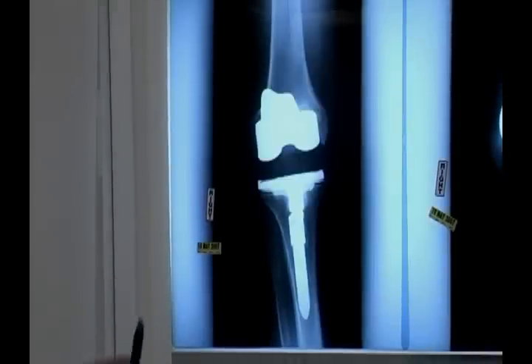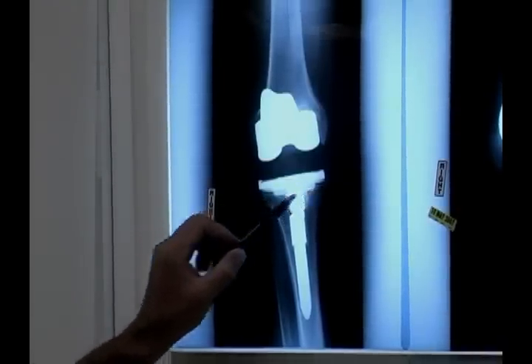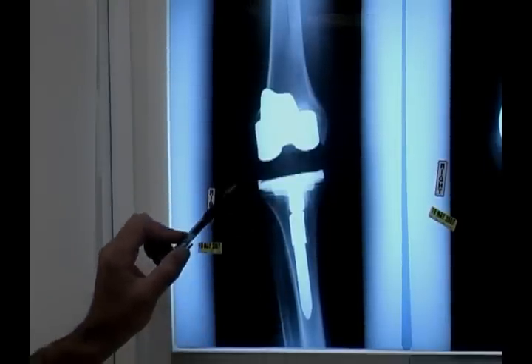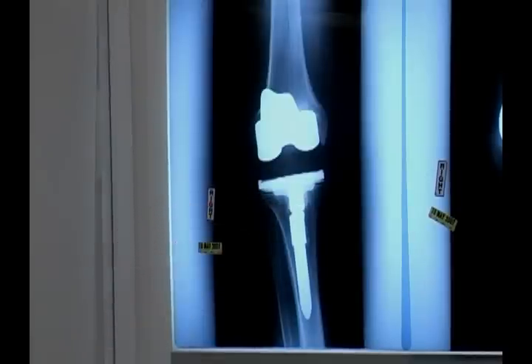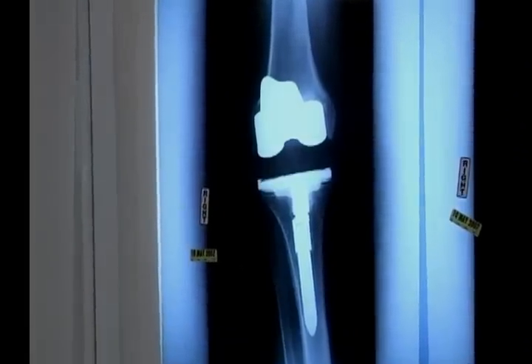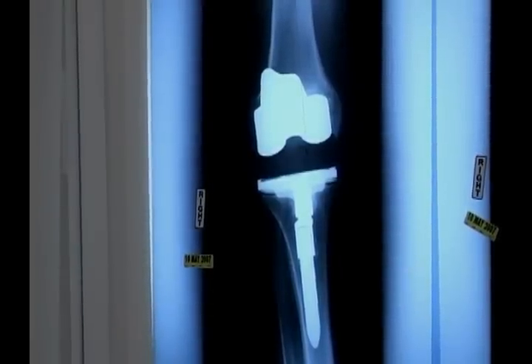This is an AP of the right knee, and what we look at here with regard to loosening is a breakdown of the cement-bone interface right here at the tibial plateau. This is a revision tibial component. Problems with this component are the fact that the keel is not cemented and the stem is a little bit undersized for the tibial diaphysis, and based on the patient's activity level this has led to some mechanical loosening.